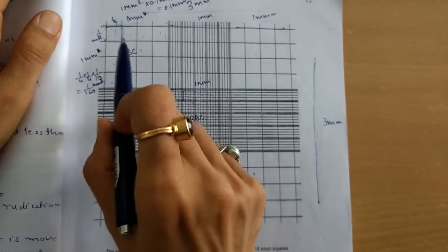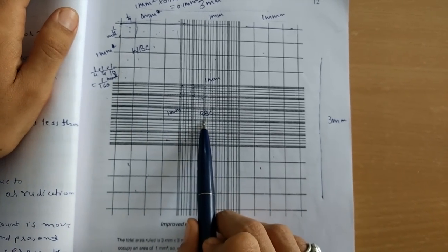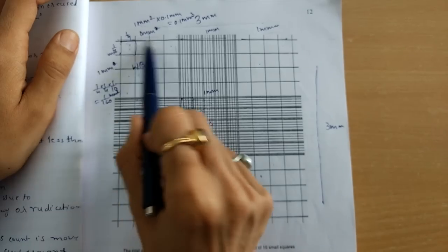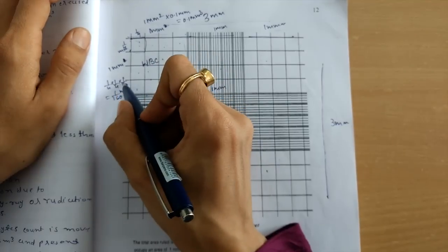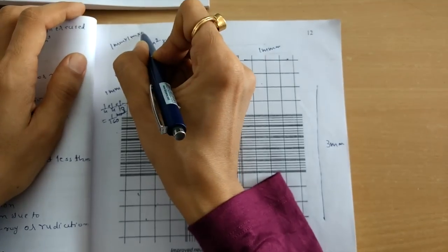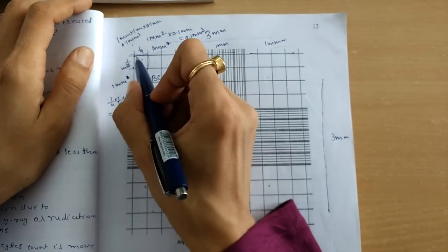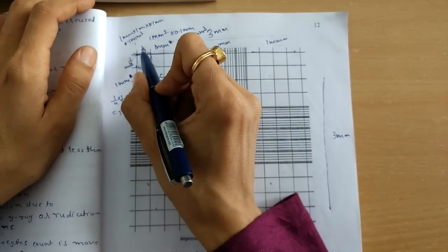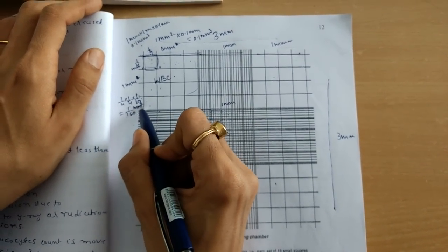Okay? Now we discuss the volume of each and every square, the WBC counting square as well as the RBC counting square. Let us start with the WBC counting square. For the WBC counting square, as we have discussed, the length and the breadth are 1 millimeter, and depth is 0.1 millimeter or 1 by 10. So the total volume would be 1 millimeter multiplied by 1 millimeter multiplied by 0.1 millimeter. So it becomes 0.1 millimeter cube. Okay? And what about the area of this small square? That becomes 1 by 4, because the whole is 1. So this is 1 by 4. So 1 by 4 multiplied by 1 by 4 multiplied by 1 by 10. So it would be 1 by 160 millimeter cube.